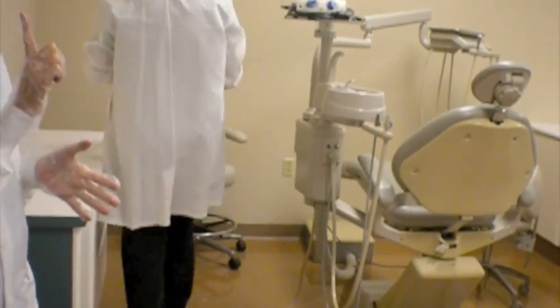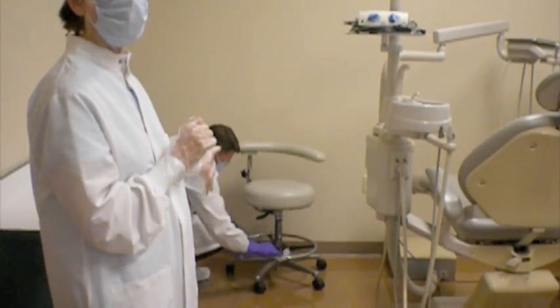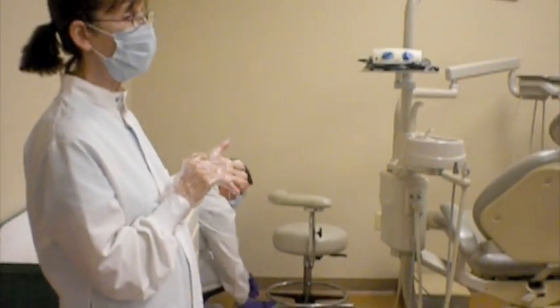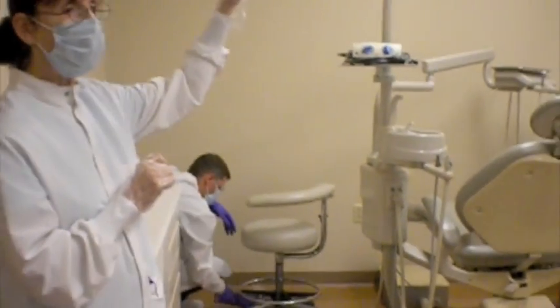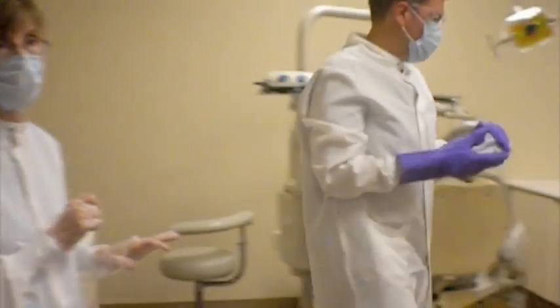Okay, so the first wipe of the unit is done, which means now, what should he do? He's on the floor. Right. Discard that wipe, wash his utility gloves, two 20-second consecutive wash rinses, and begin all over again, starting with the light for the disinfection wipe of the unit.